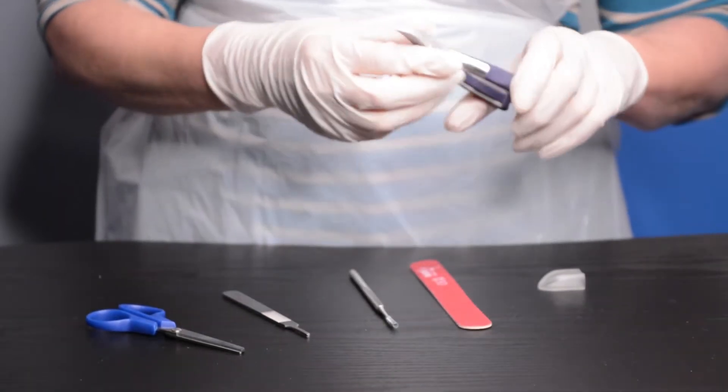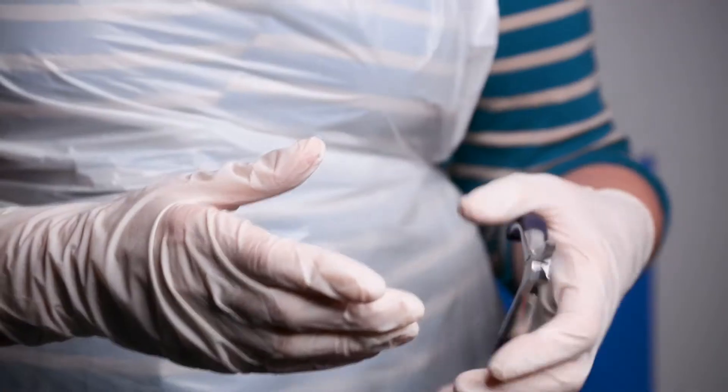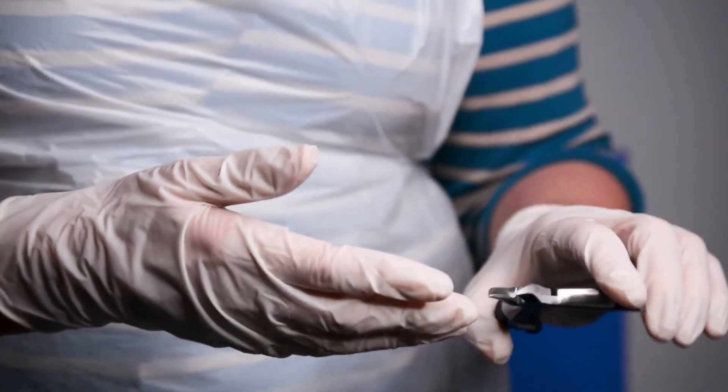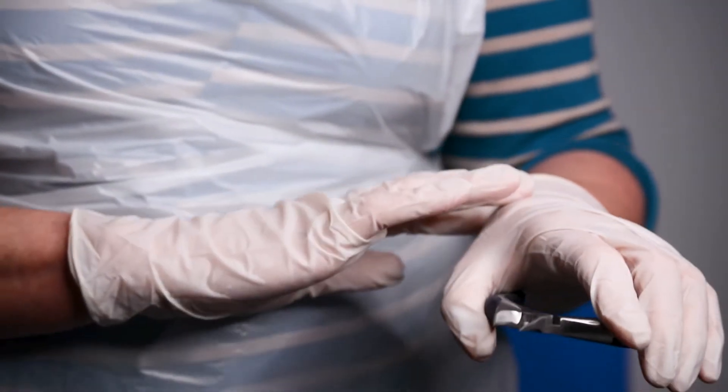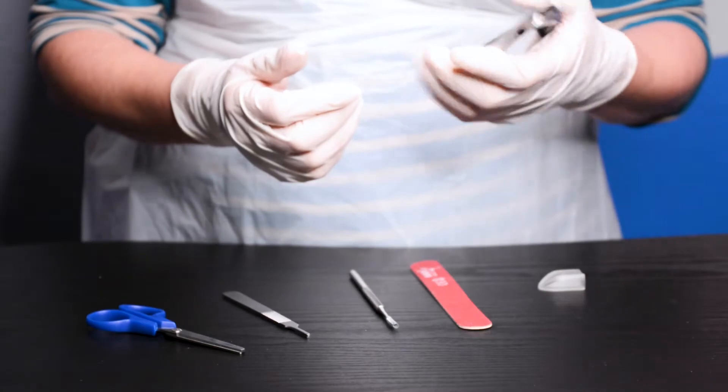The unique silicone grip handles of the nipper help absorb the shock caused by nail cutting, which reduces strain on the hand and wrist. They also feel more comfortable to hold.